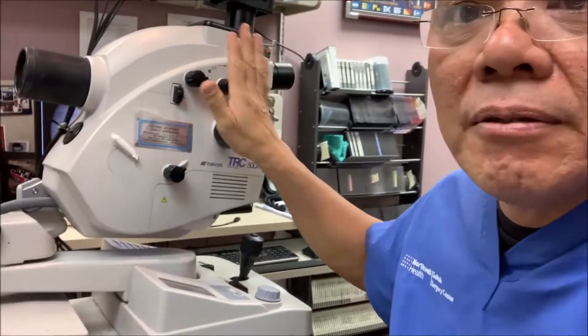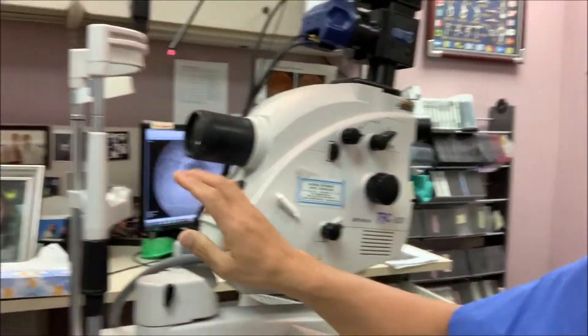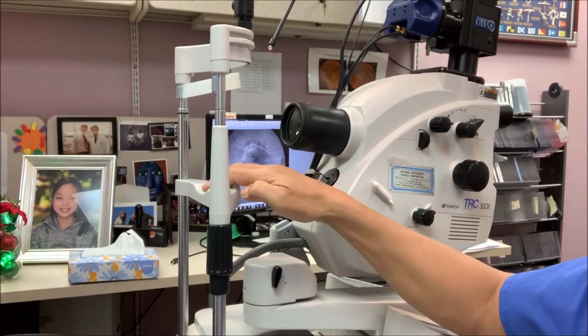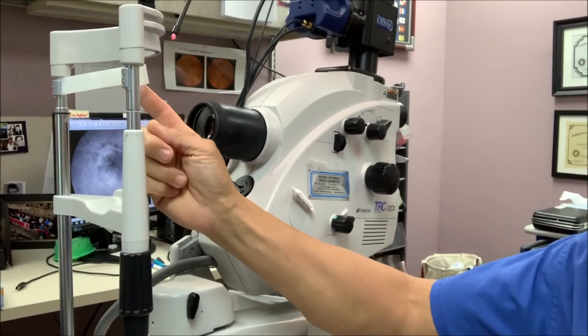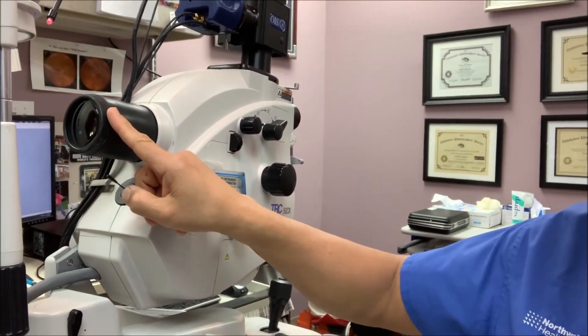Over here is what is referred to as a fundus camera. The fundus camera will take the flash photographs which we will utilize to see whether or not your eye has disease. You will be positioned as the patient with your chin here and your forehead here. This is the camera flash, which I'm going to demonstrate to you next.